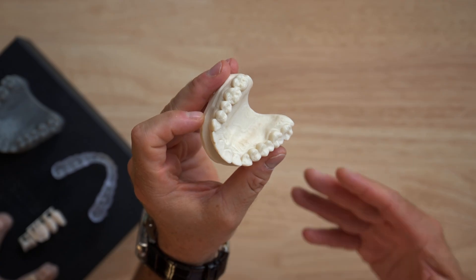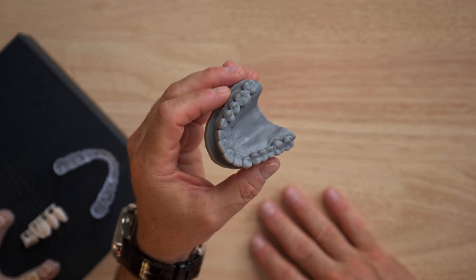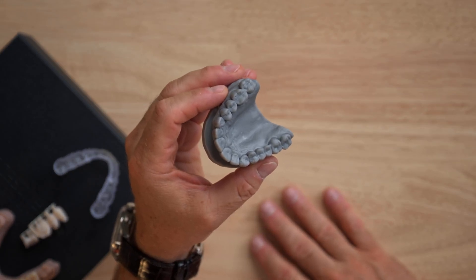In our lab, we routinely print various devices, such as this standard-quality FDM model, which is ideal for documentation, or this high-quality resin model, perfect for planning and executing treatments.